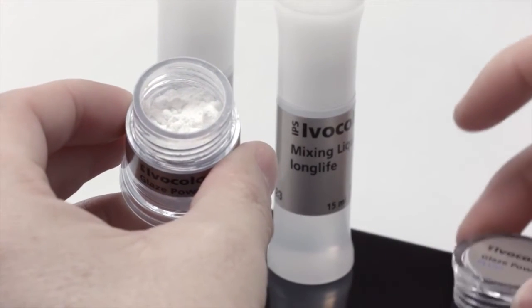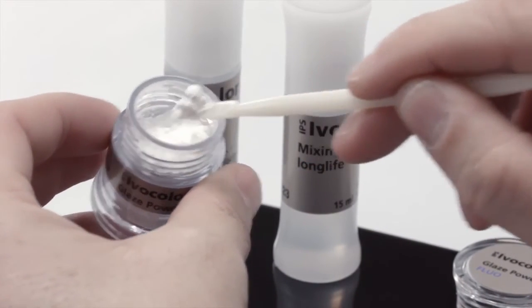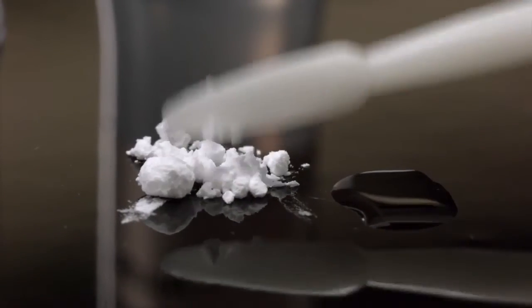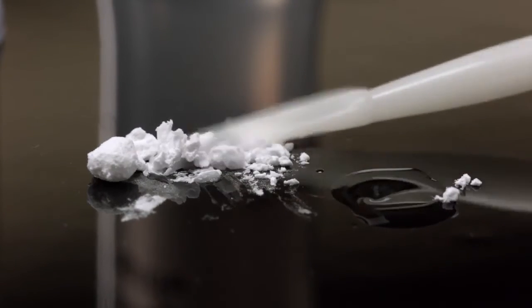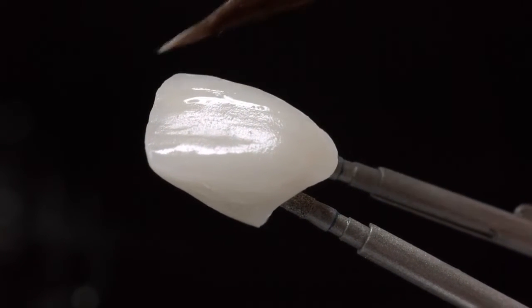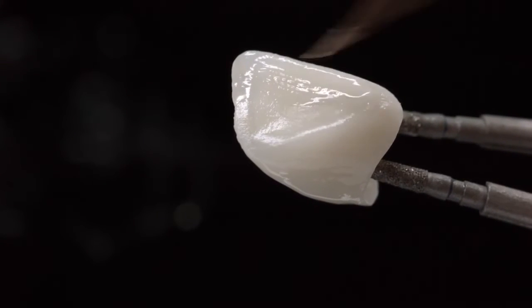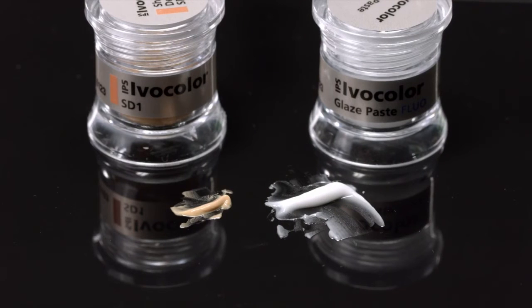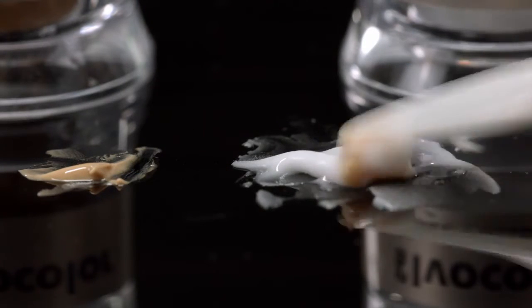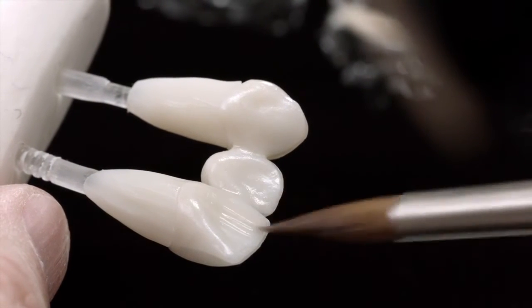IPS Ivocolor Glaze Powder is especially suitable for glazing layered ceramics when only a small degree of gloss is required, in combination with the material's own shine, and the surface texture of the ceramic is to be maintained. Use the IPS Ivocolor Mixing Liquid, All Round or Long Life, to mix the glaze powder. Apply the glaze in a thin layer on the veneer and carry out the glaze bake according to the respective ceramic material's firing recommendations. The associated firing tables can be found in the IPS Ivocolor instructions for use. If you need to make a slight shade adjustment in the glaze bake, mix the relevant stain color with the glaze and then apply it to the restoration. Avoid applying the stain in the unfired glaze as this can lead to rough surfaces on the fired restoration.